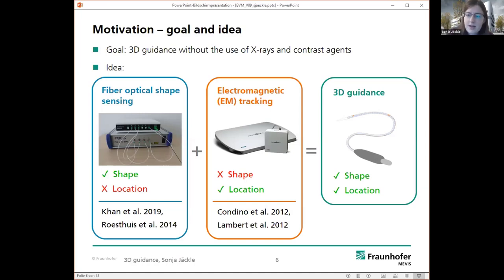We combine both technologies, and then we can have the pros, the shape, and the location tracking from both methods, and enable a three-dimensional guidance without using x-rays and contrast agent.